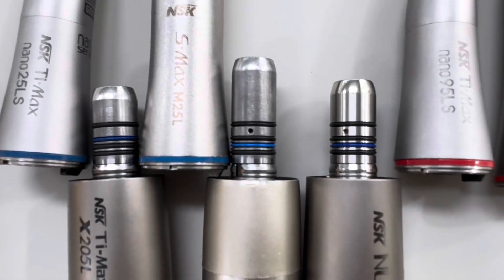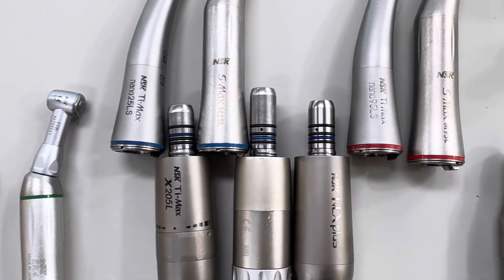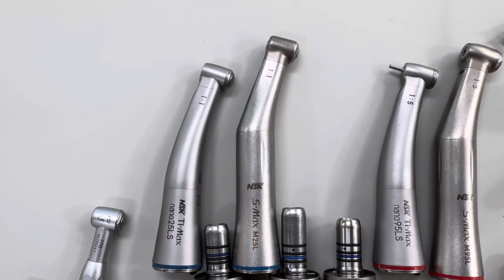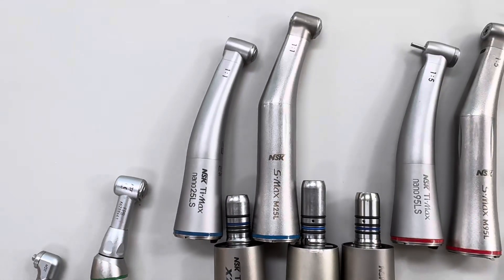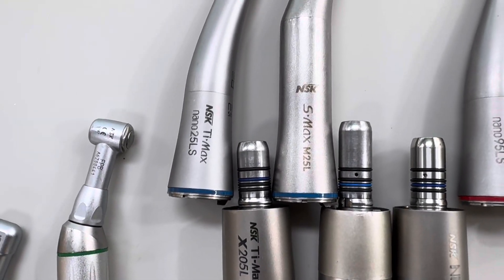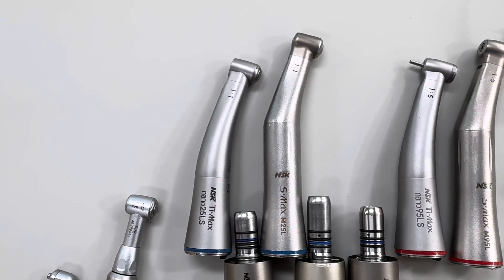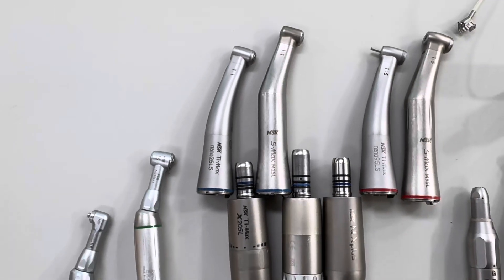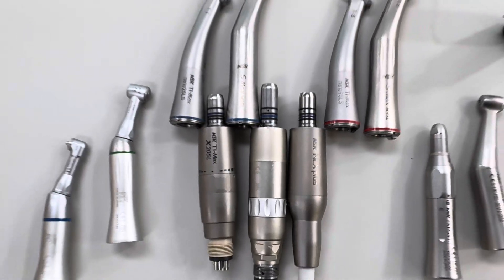What we've got here is this nice little short shank. The more modern motors have got this short shank — a short shank on the motor means we can use a handpiece that also has a shorter shank, or it will be shorter because it doesn't need as deep a pocket for the motor to go into. So we end up with a lighter, better balanced handpiece with less metal, so it's most times also cheaper — an all-round better handpiece by upgrading our motor.